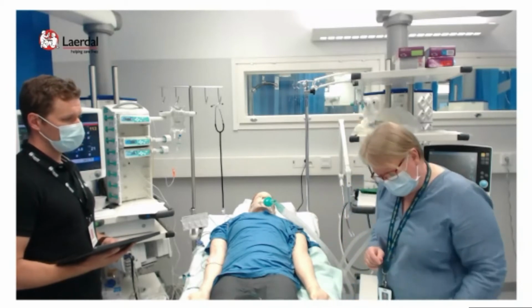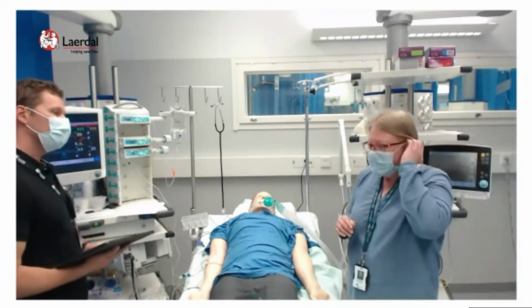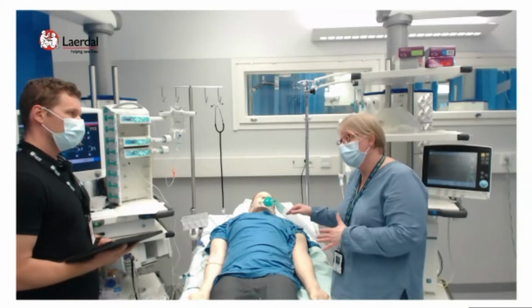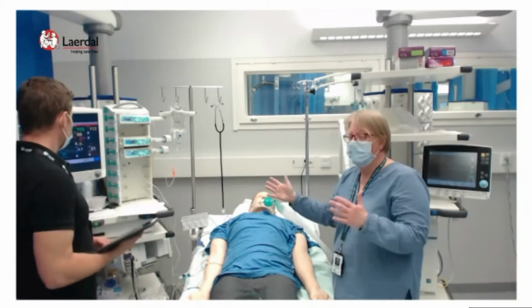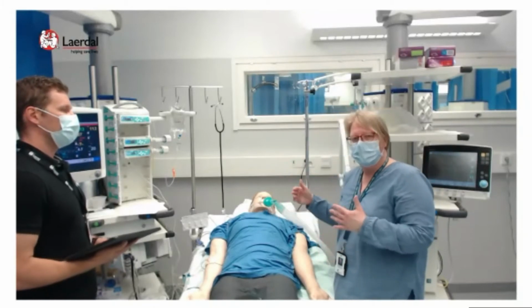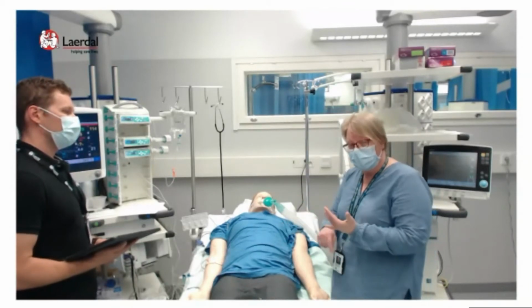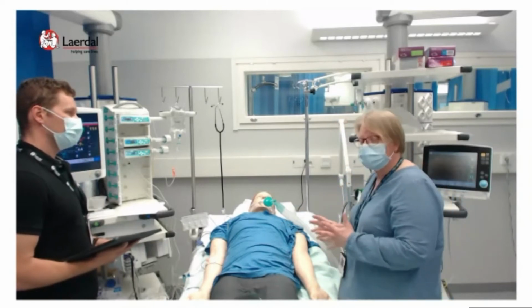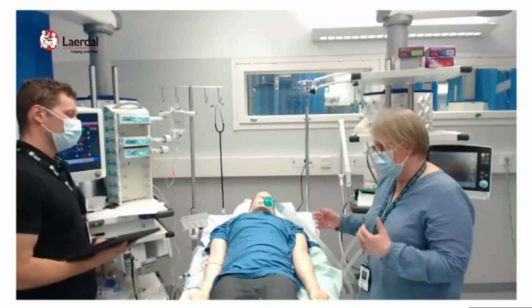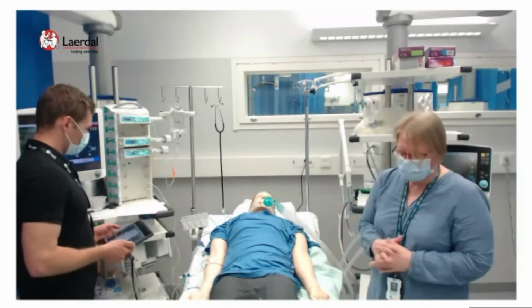Well, next, the problem is that we have increased the PEEP and the tidal volume, and maybe if we didn't give relaxation with rocuronium, a muscle relaxant, we might think about it now, when the saturation might fall even lower, to less than 80. We could use muscle relaxants and try to really calm the patient down. As we know, prolonged sedation and muscular relaxation are risk factors for critical care neuropathy and polyneuropathy. So it's very much going up and down with these choices and decisions we make.